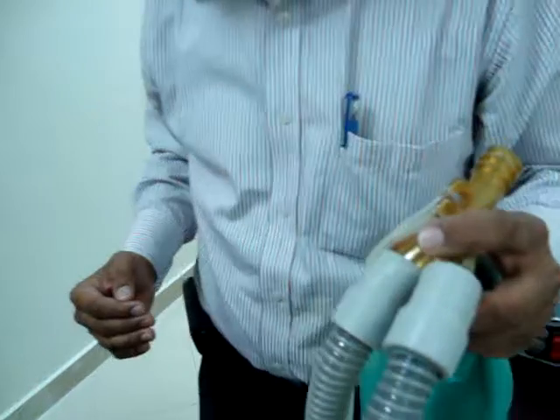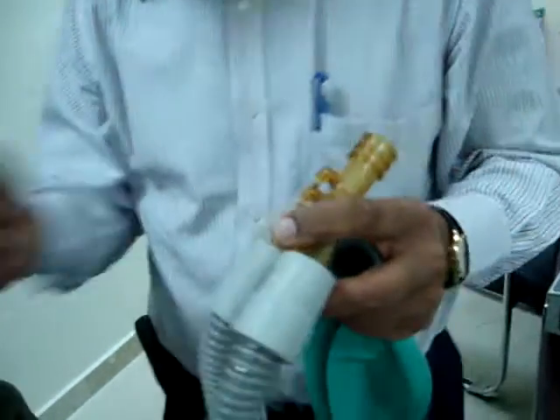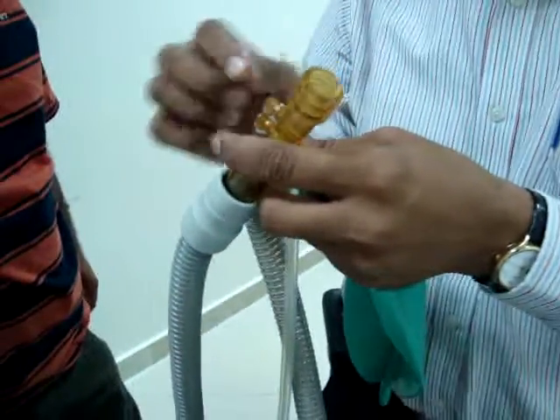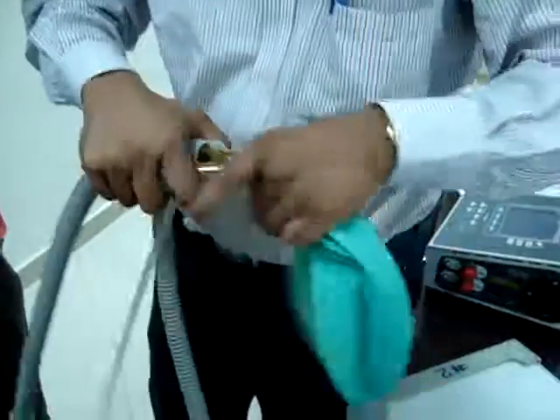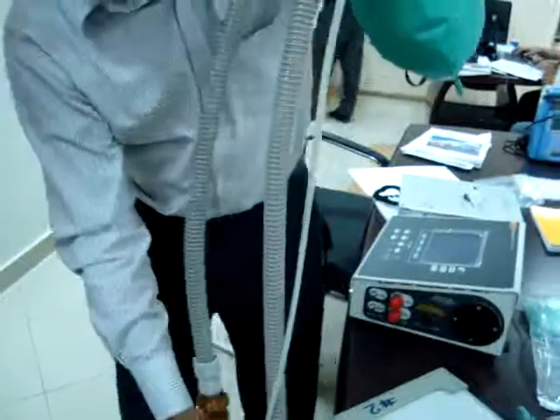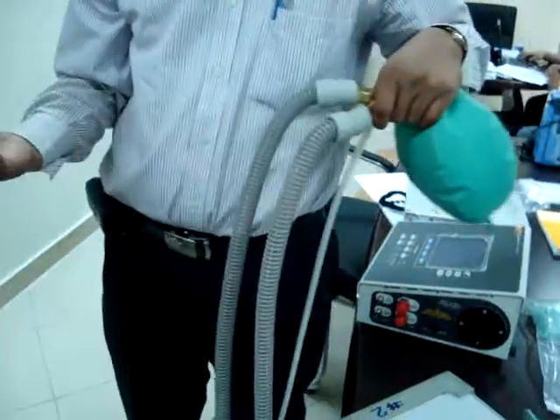One input, how much is coming, then the output from the orifice. This is giving some input, and then how much is passing at the output. Then he will also see feedback. This is another feedback, there is another feedback to measure the flow. This feedback is to know the volume.